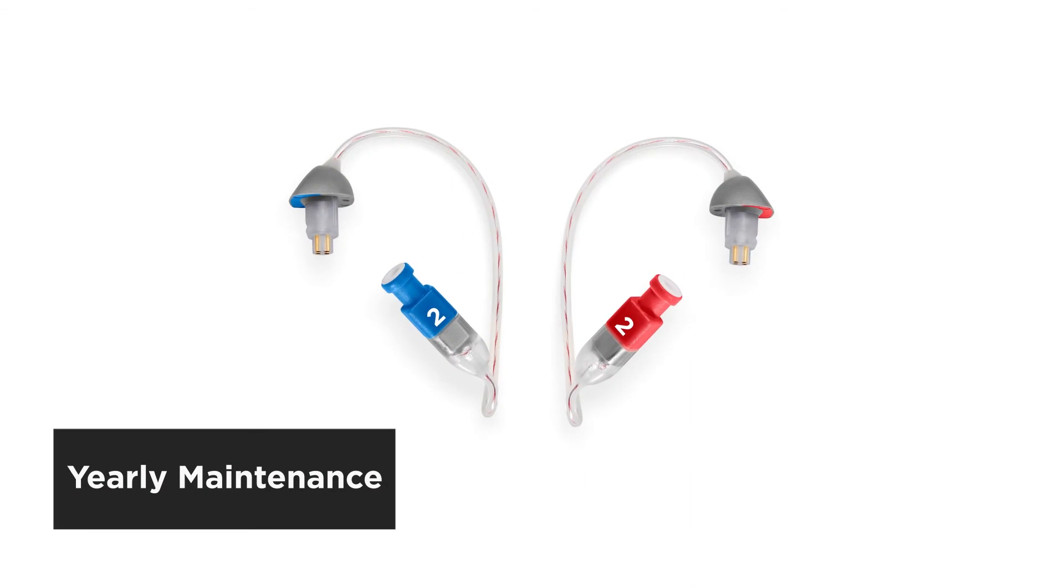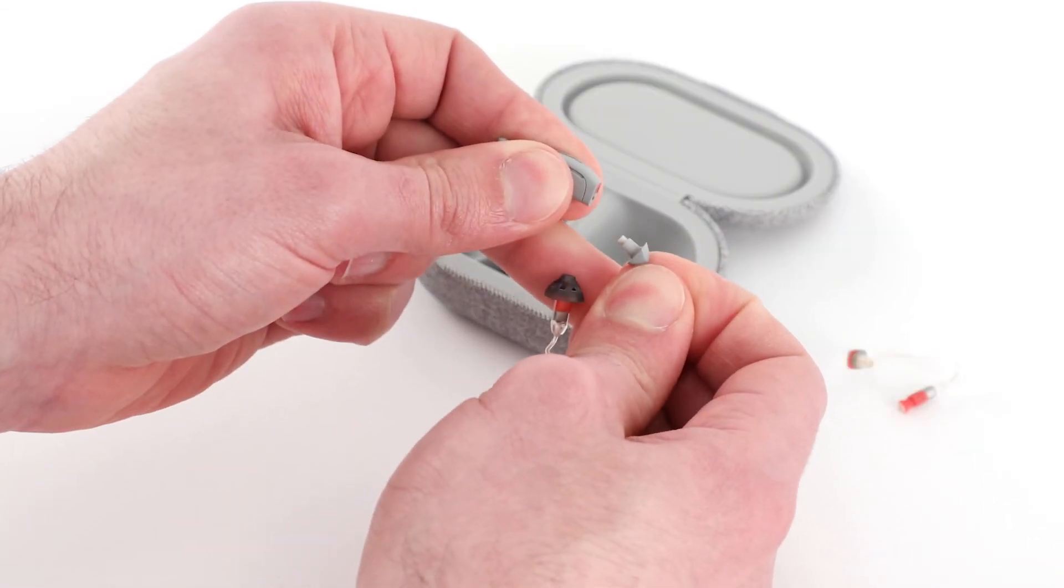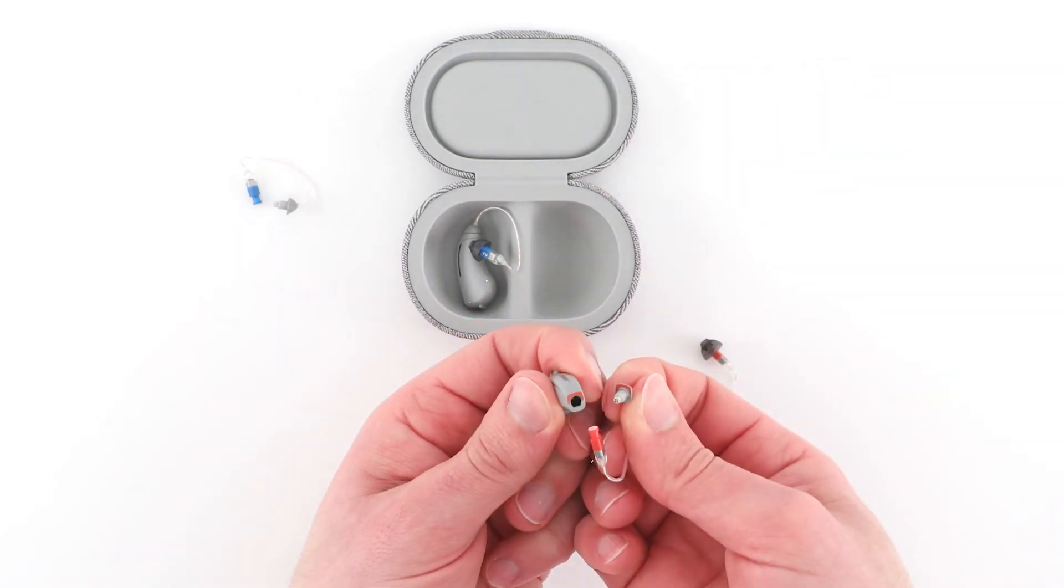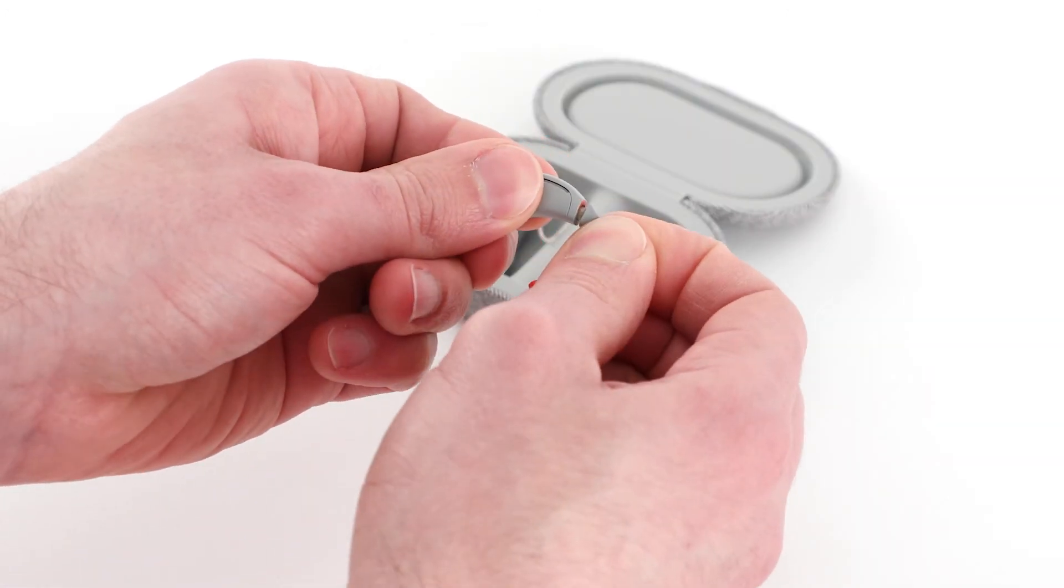We recommend replacing the cables once a year. If the hearing aids sound quieter than usual, or if the audio is crackly or intermittent, you may need to replace them sooner.